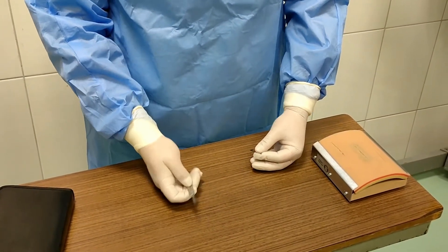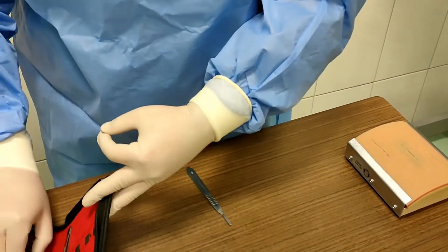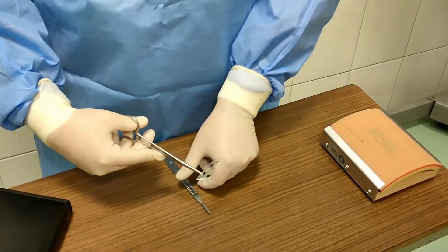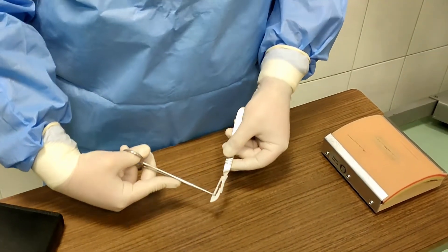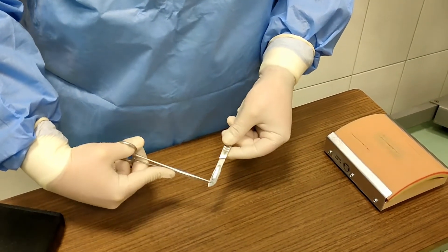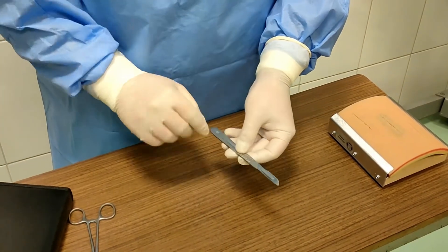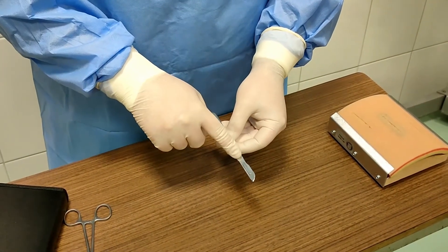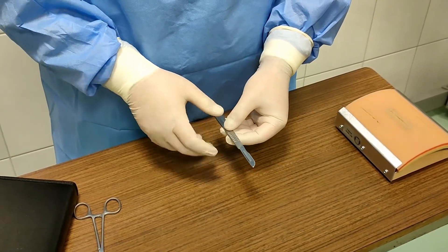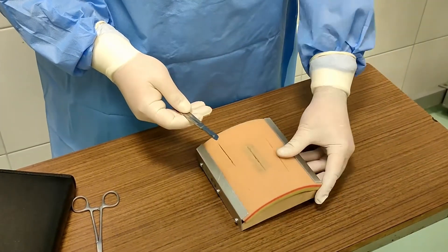First, we are going to start off with scalpel blade handles. The most common scalpel blade handle used is the number 3 blade handle. We have several different blades, and the most common is number 10. The proper grip of the scalpel handle can be done one of two ways.